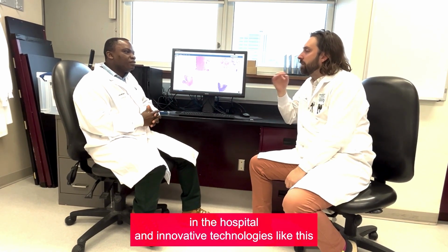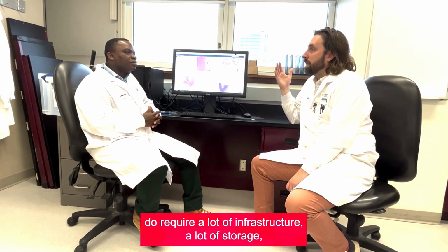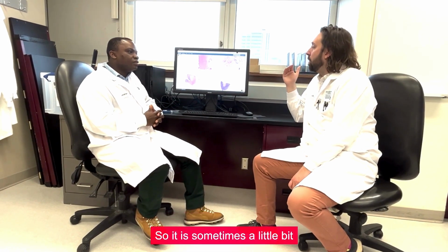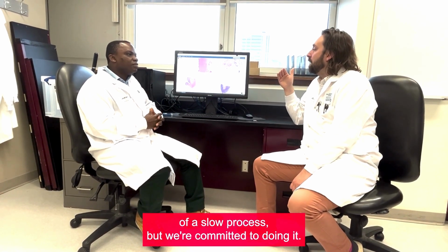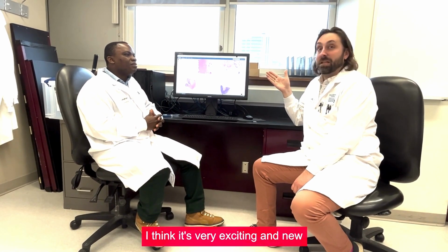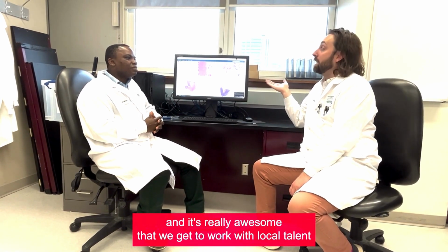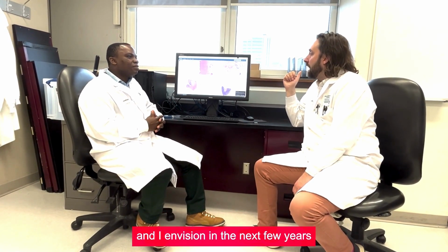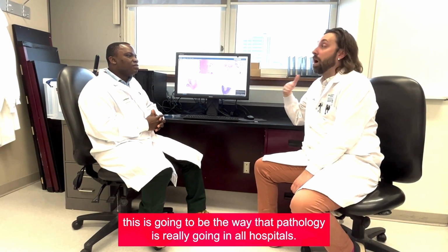Innovative technologies like this do require a lot of infrastructure, a lot of storage, and a lot of information technology support. So it is sometimes a little bit of a slow process, but we're committed to doing it. I think it's very exciting and new, and it's really awesome that we get to work with local talent. And I envision in the next few years this is going to be the way that pathology is going in all hospitals.